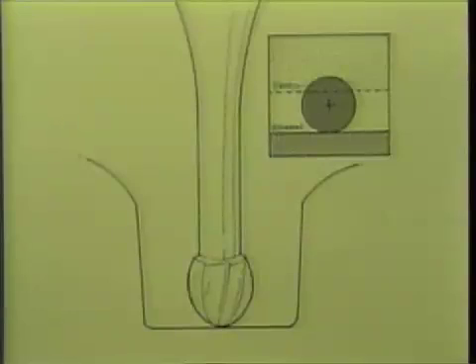The following diagrams will demonstrate the positioning and the proper stroking of the number two round burr. The number two round burr is placed on the exposed dento-enamel junction as indicated in the upper right diagram. Note that the burr is placed one-quarter on the dentin surface and three-quarters on enamel.